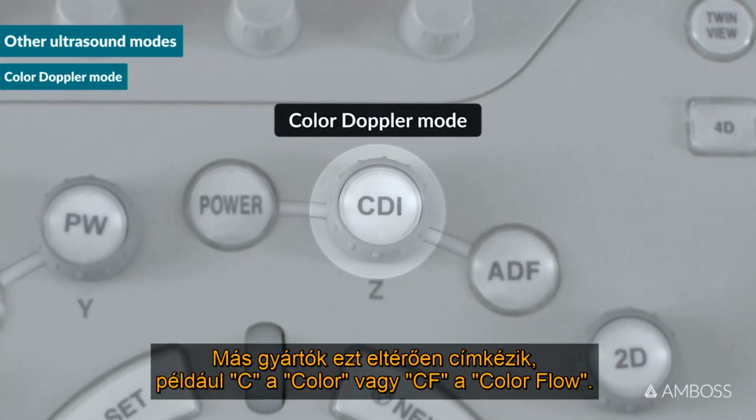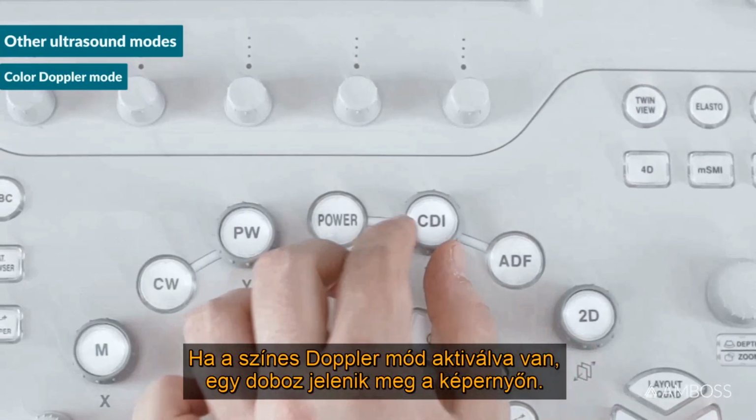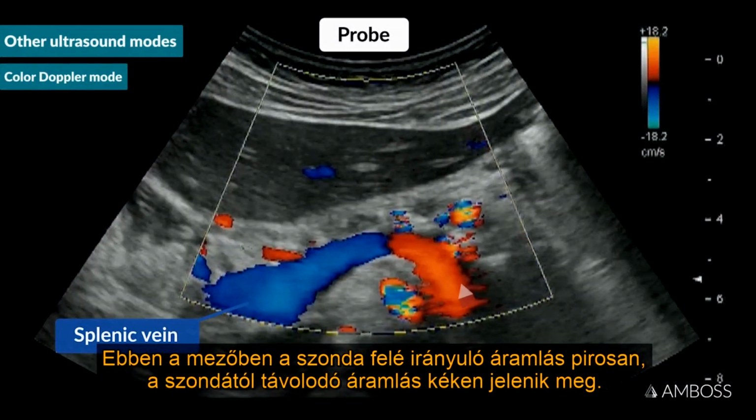Other manufacturers label this differently. For example, C for color or CF for color flow. When Color Doppler mode is activated, a box appears on the screen. Within that box, flow toward the probe will appear red and flow away from the probe will appear blue.